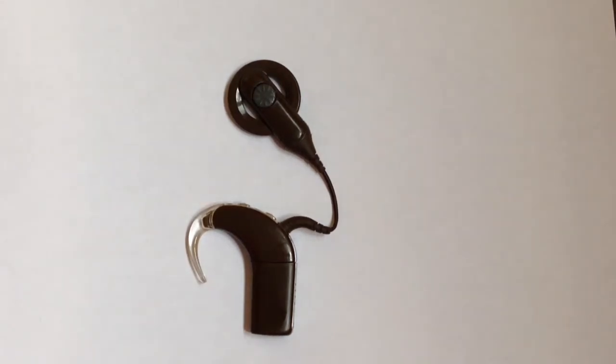Hello everyone, what is going on? Welcome back to the channel. For this video, I'm going to be showing you guys how to take the hook off of a Nucleus 5 Cochlear Implant. So, enjoy the video.